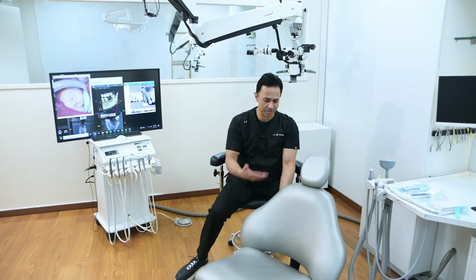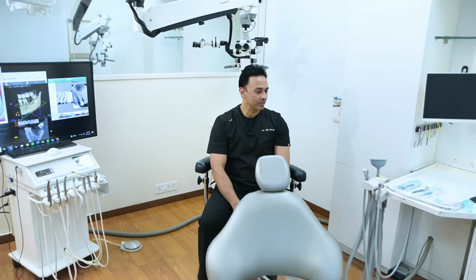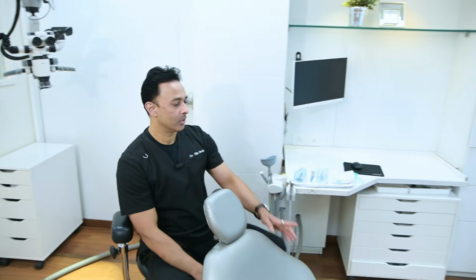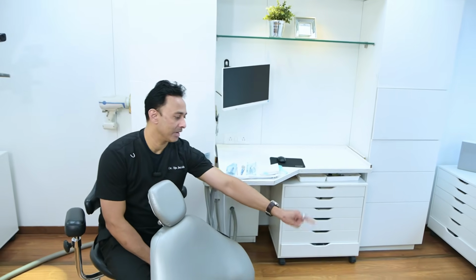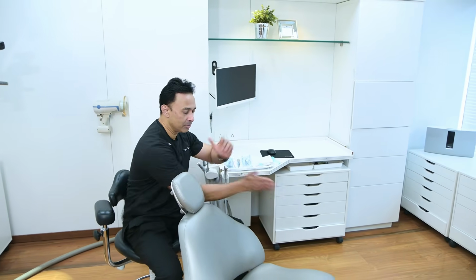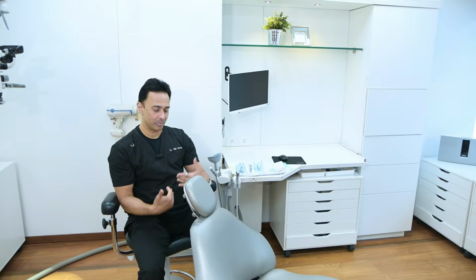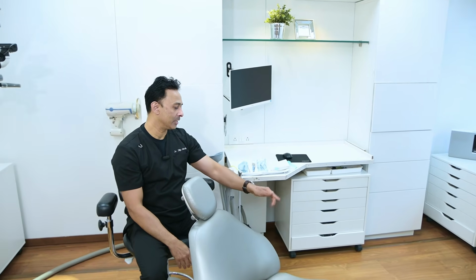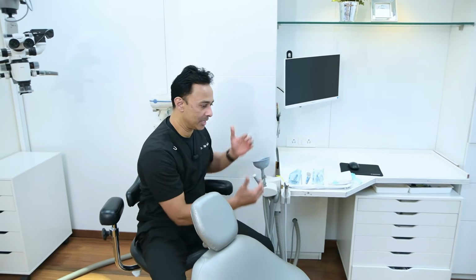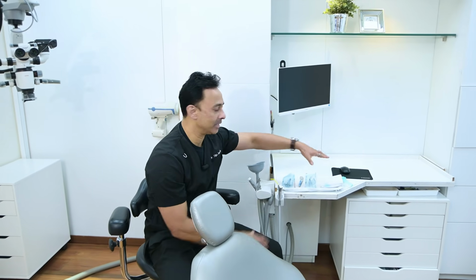Of course, memory foam everywhere so that the patient's comfortable. And then the other big difference that you see here is the back wall of the assistant. Now in conventional setups, because you have a spittoon and the suction is attached to the spittoon, the assistant has to shuffle between turning to get the suction and then moving towards the patient who's going to be down here. But in here, what we did was we made the back wall and the suction attached to the back wall. So the assistant is always facing this side, and everything he or she needs will be at an arm's length.